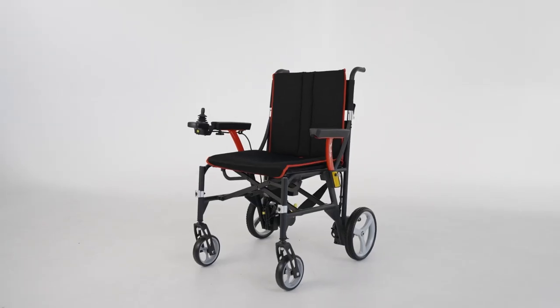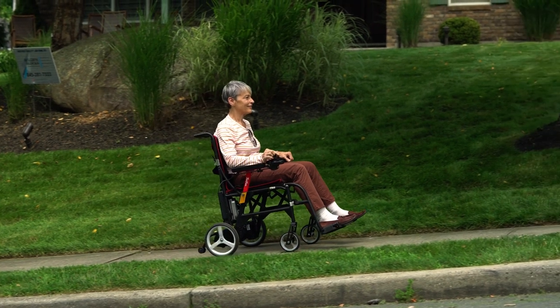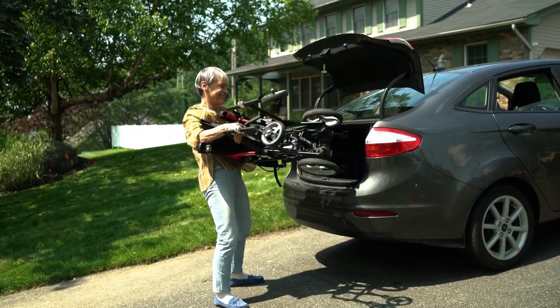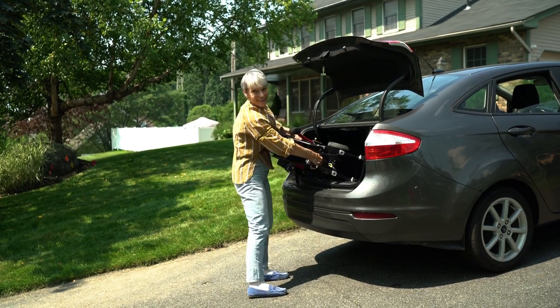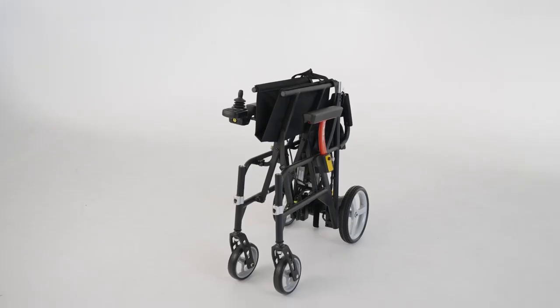What I love about the Featherweight Electric Wheelchair is, of course, how beautiful it is, how smooth the ride is, and most importantly, how light it is. If you're traveling and going in and out of the house and want to move around with an electric wheelchair, there's no other wheelchair around that will do what this chair does. It's so light and so compact, you could easily throw it in the back of your car. You're going to love this electric wheelchair.